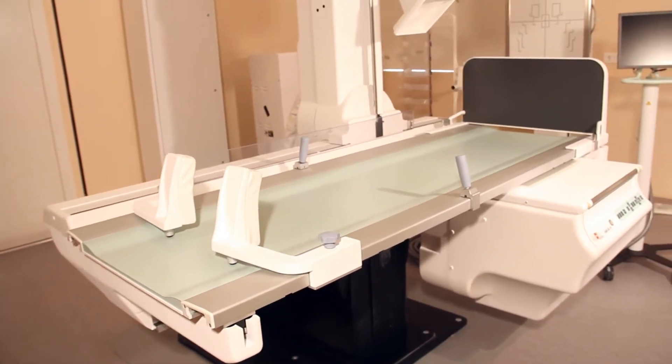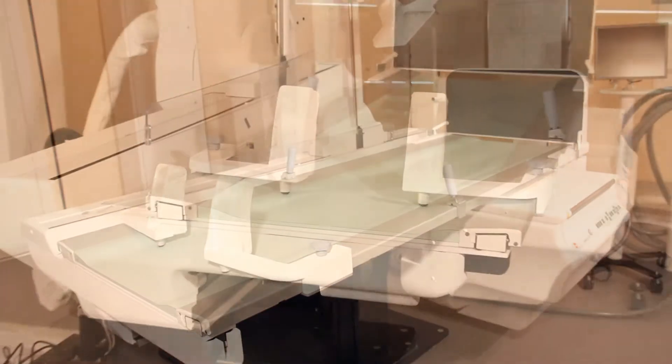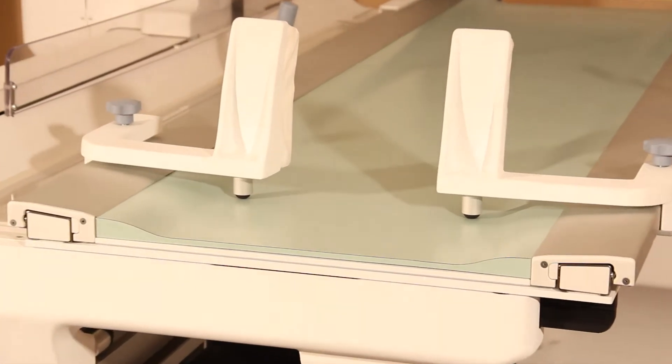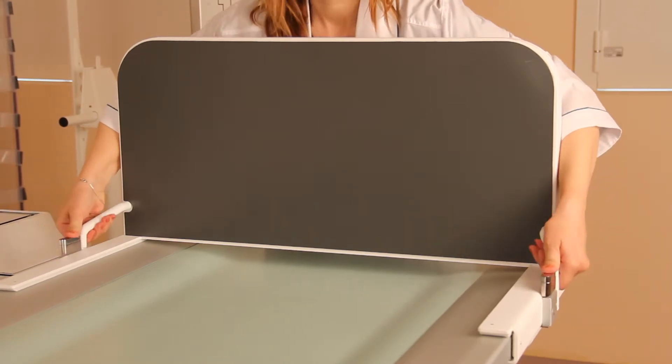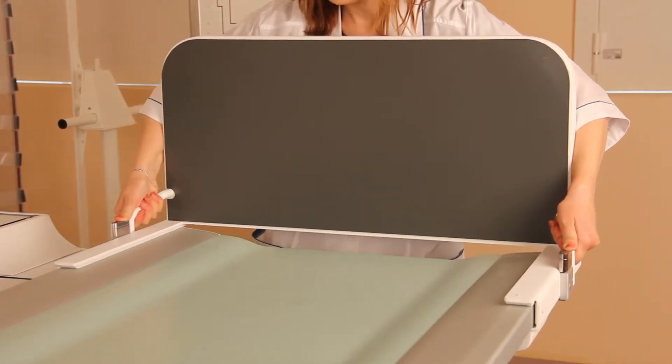Table configuration includes comfortable shoulder fixator, arm holders, and portable foot board which can be easily taken off and placed at the opposite end of the tabletop.